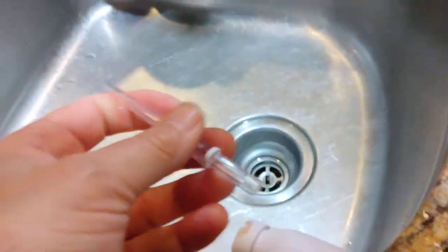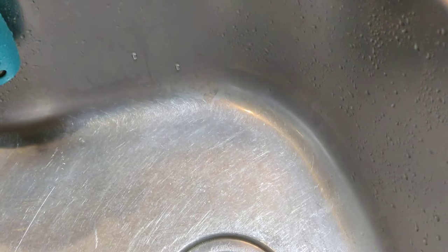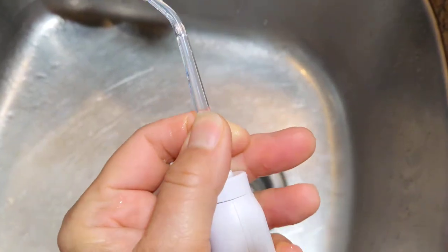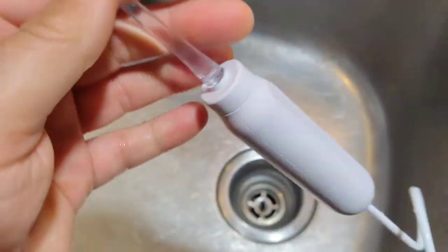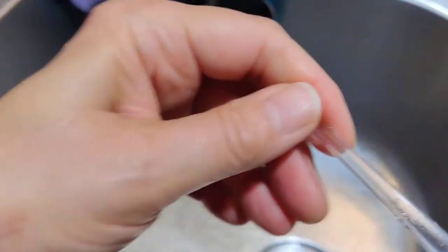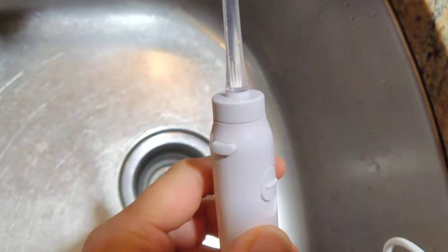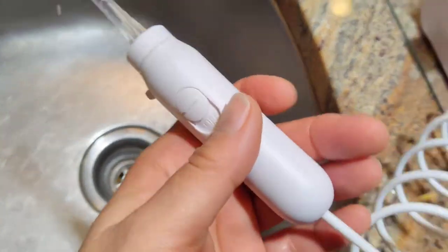It's back in. It rotates as well around in the handle, so I'm holding the handle there and you can turn this to whatever suits you. Excuse me for being awkward using one hand to record and one hand to play with this.